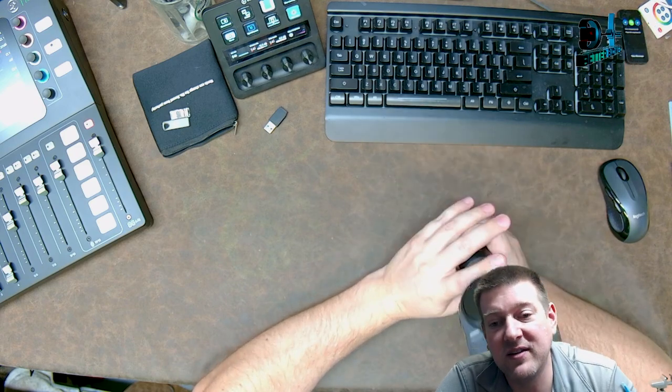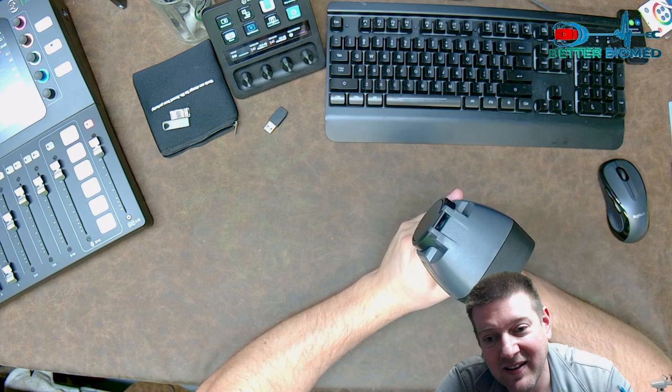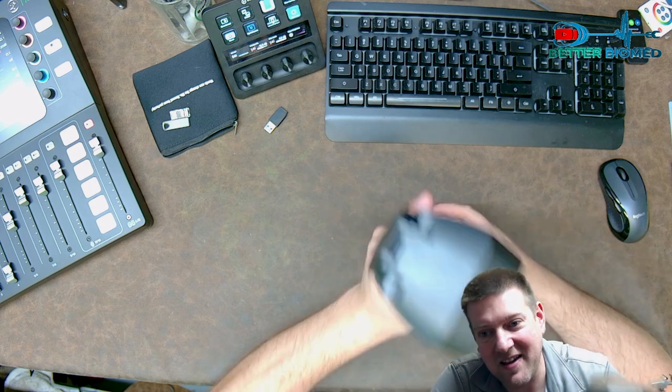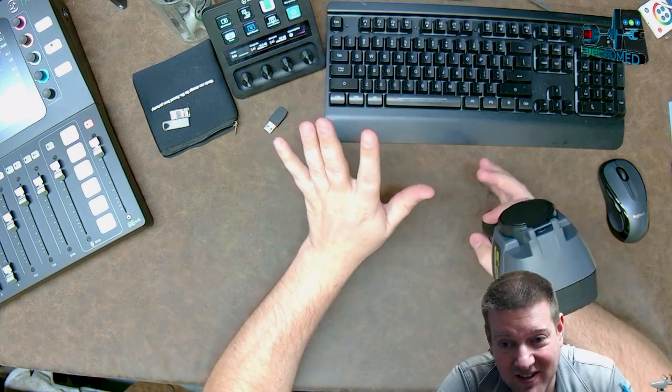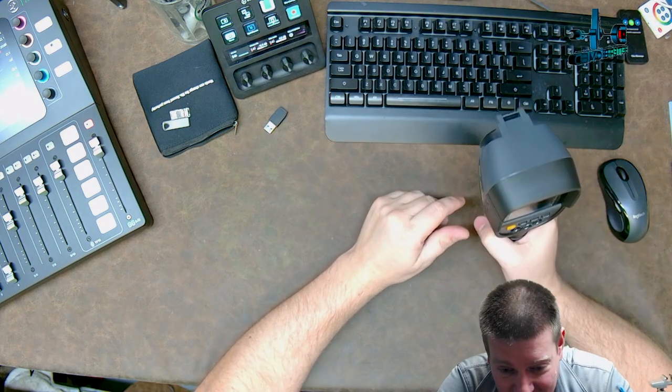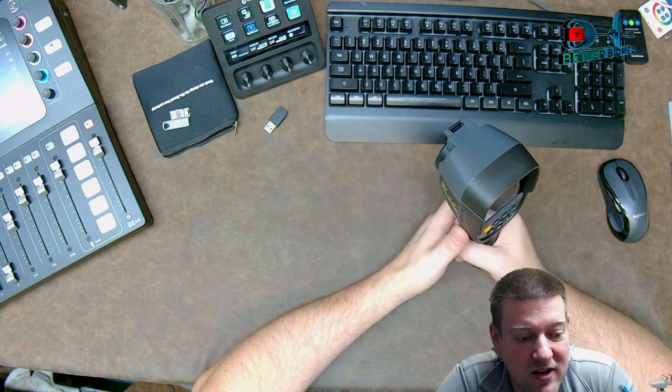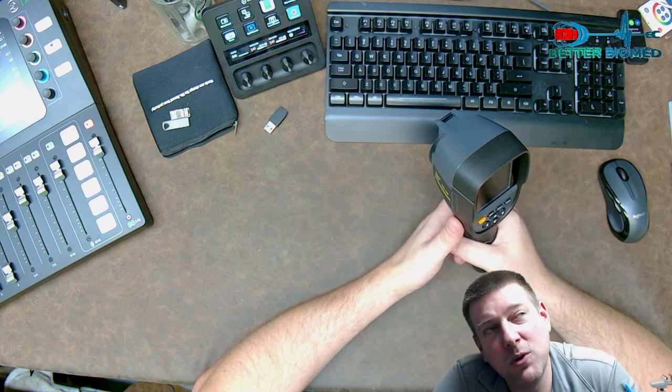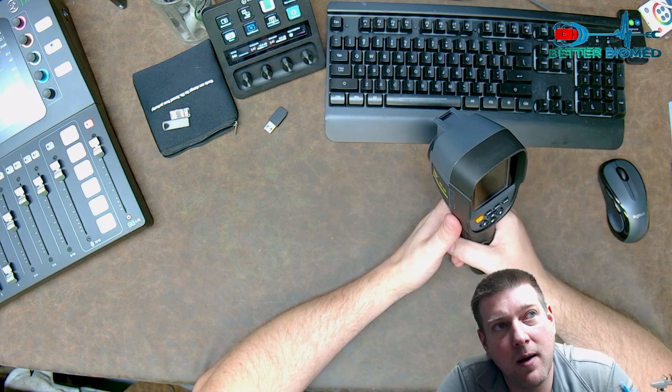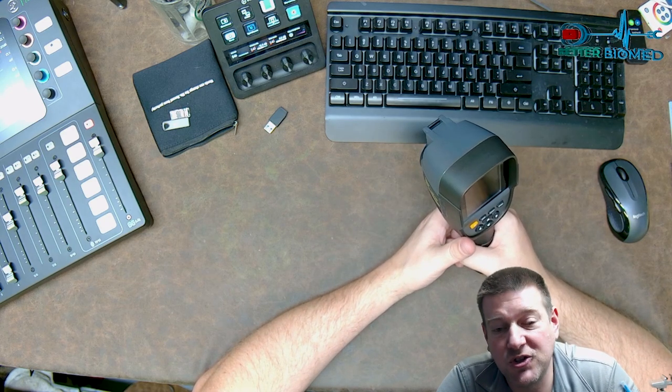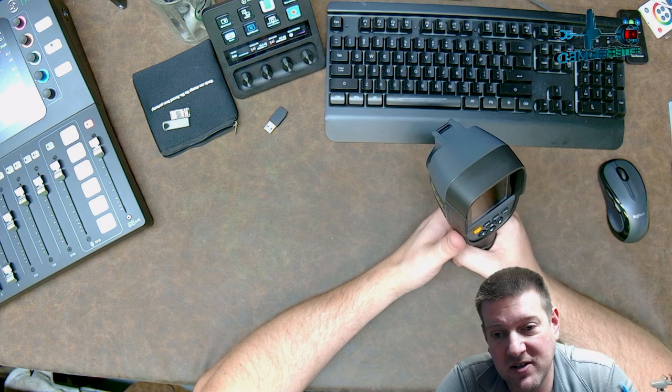It takes seconds to power this guy on and walk into a section like an ICU and shoot this camera at your central monitoring station without interrupting anybody's workflow. And you can see if a computer or workstation is sitting within a normal spectrum. If it's not, maybe you should schedule some downtime for that specific unit, because that means its fans are probably occluded and or failing, which means the bearings or something are going bad. I've seen where central monitoring stations are pushed up tight against walls. I've seen where they're stacked with stuff on top of them. And all of this leads to premature failure. And you can diagnose that remotely with this guy.